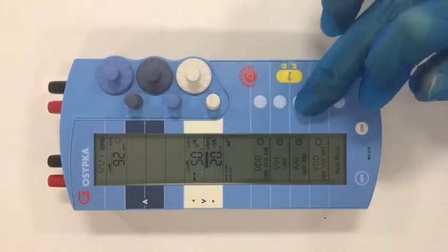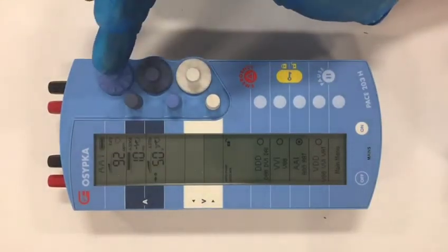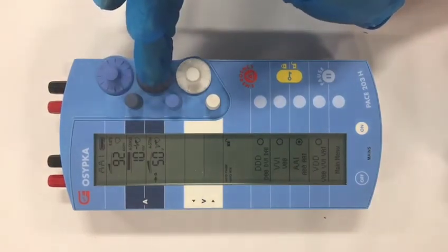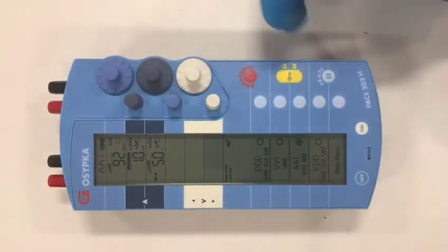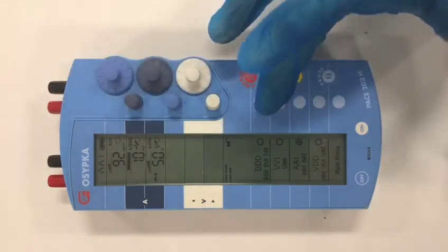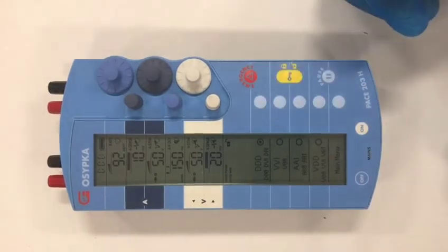If I were to put this into AAI mode — that's atrial single chamber pacing — the rate is at the top, and the sensitivity and output are in the blue panel. All the other numbers disappear as they're not relevant to AAI pacing. If I press dual chamber pacing, it remembers the ventricular parameters and brings those back into the device.